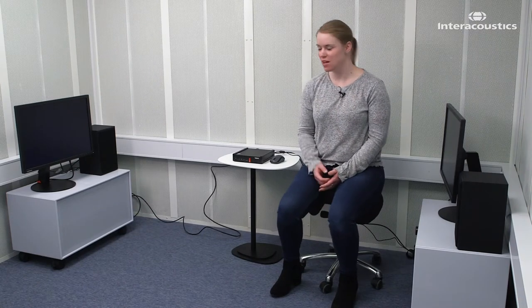I want to show you how you set up the VRA screen PC. I've connected the two screens through the HDMI cables and directly to the PC.